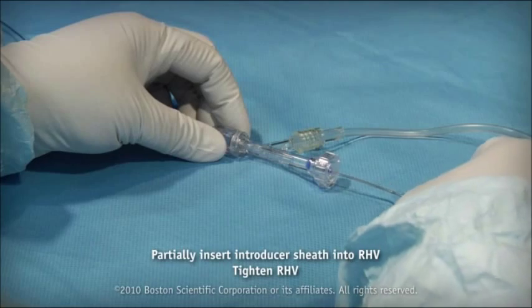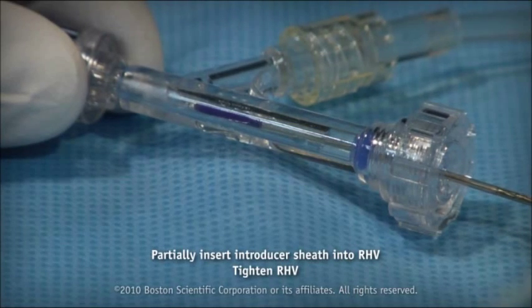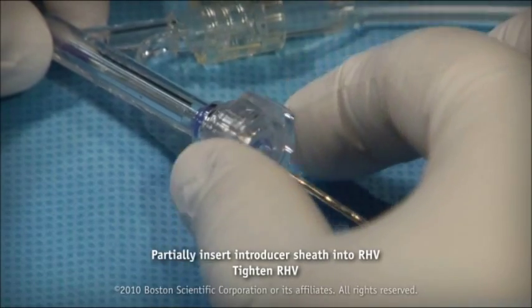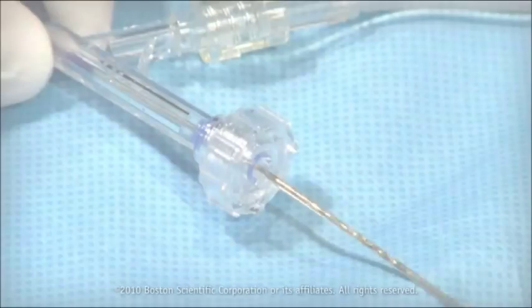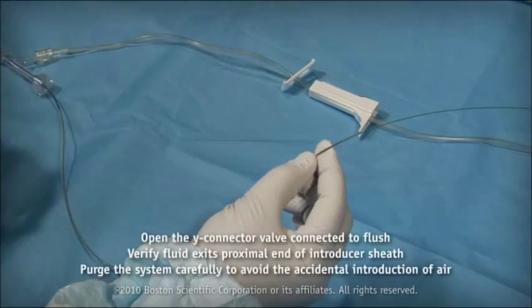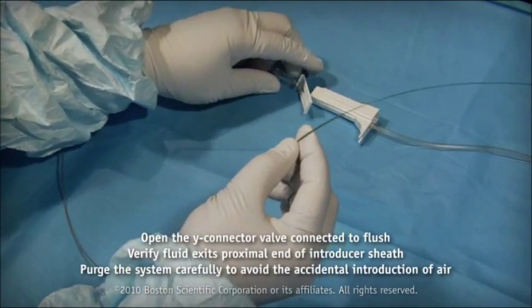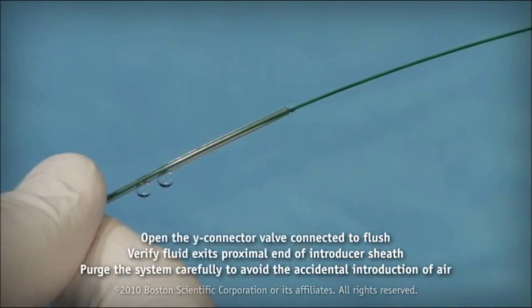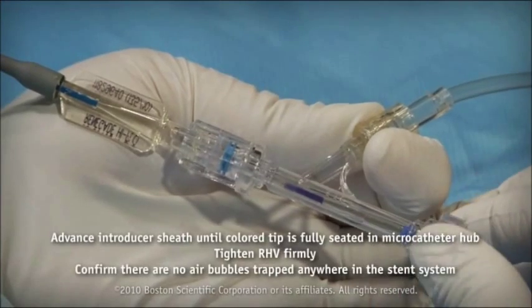Partially insert the introducer sheath into the 3.5 French compatible RHV connected to the microcatheter. Tighten the RHV. Open the Y connector valve of the RHV that is connected to the sterile heparinized saline flush. Verify the fluid exits the proximal end of the introducer sheath. Loosen the RHV.